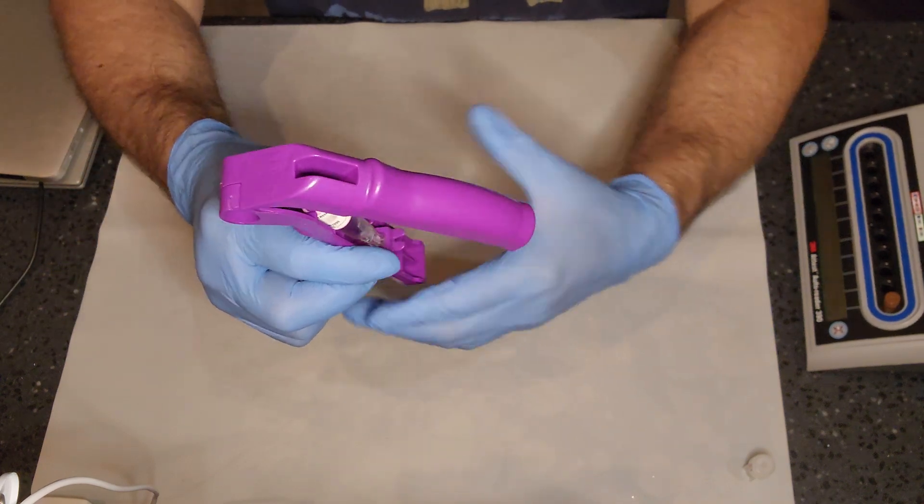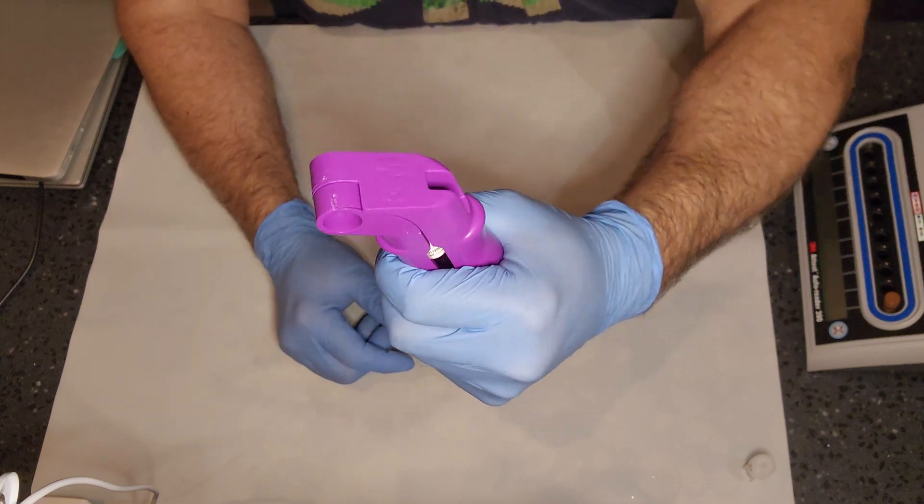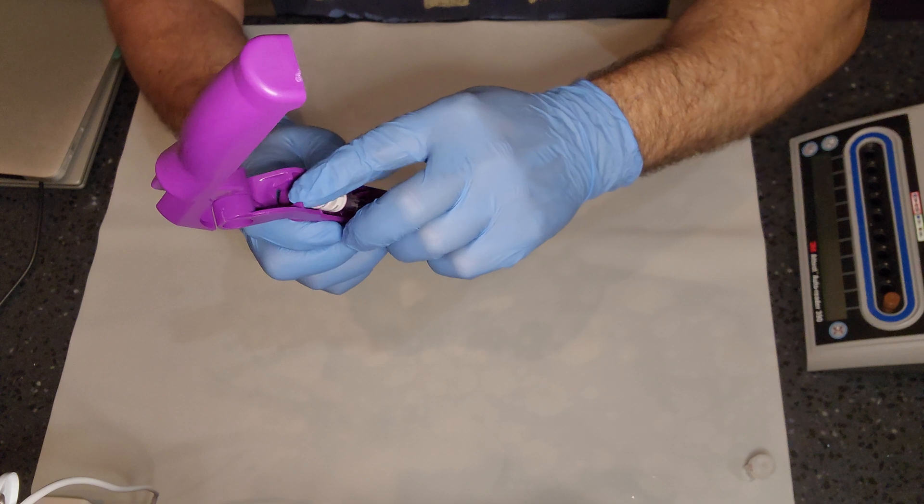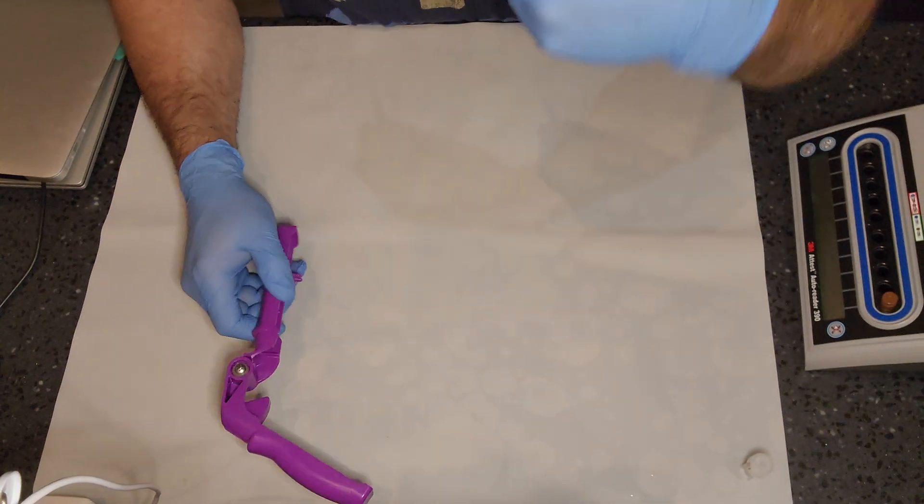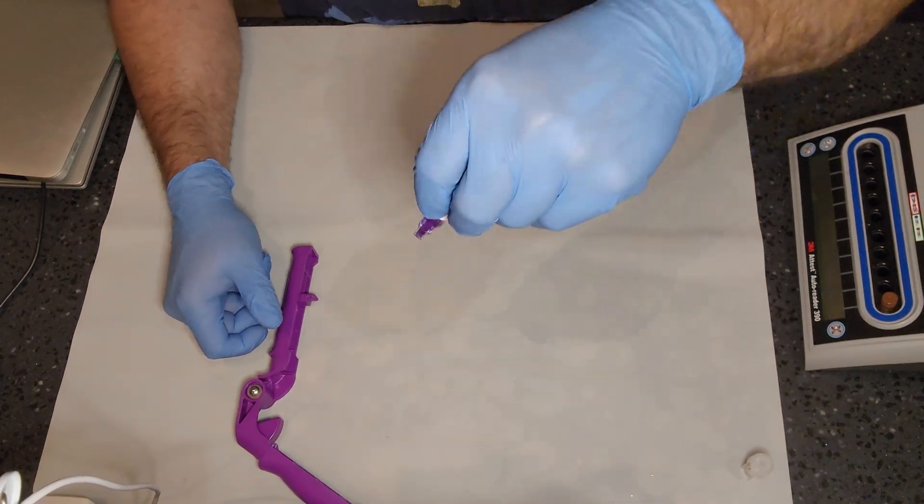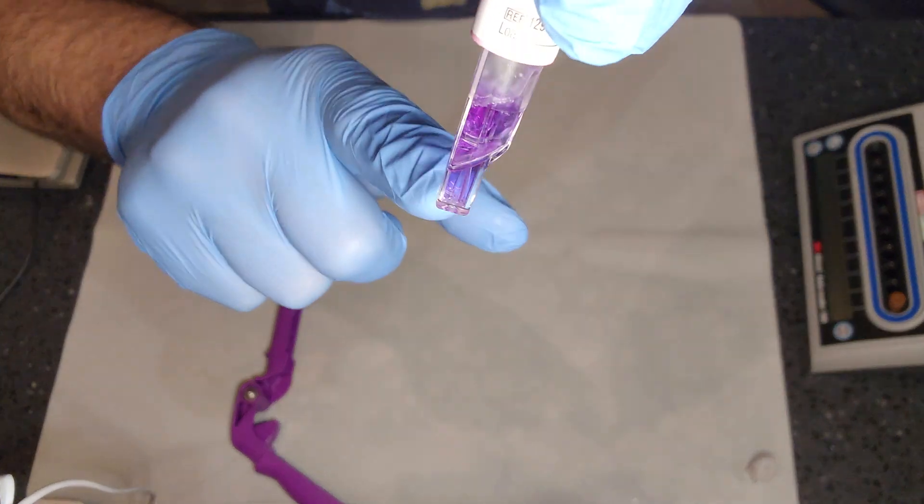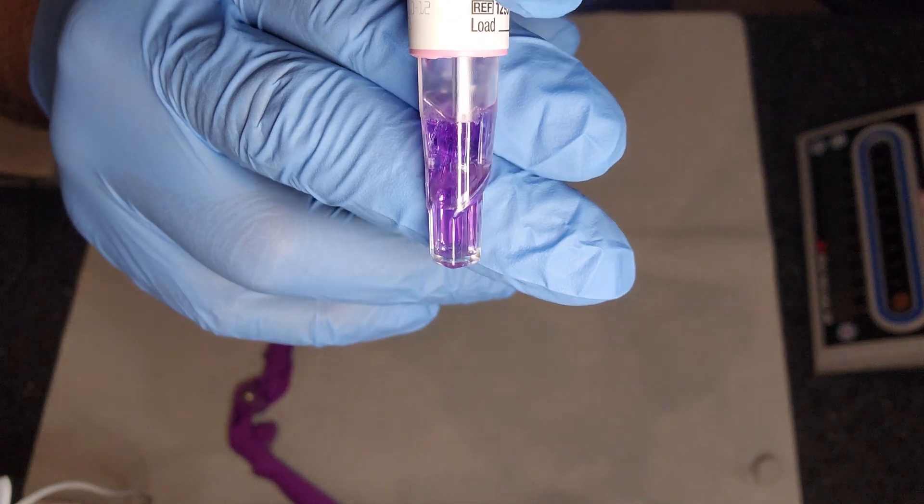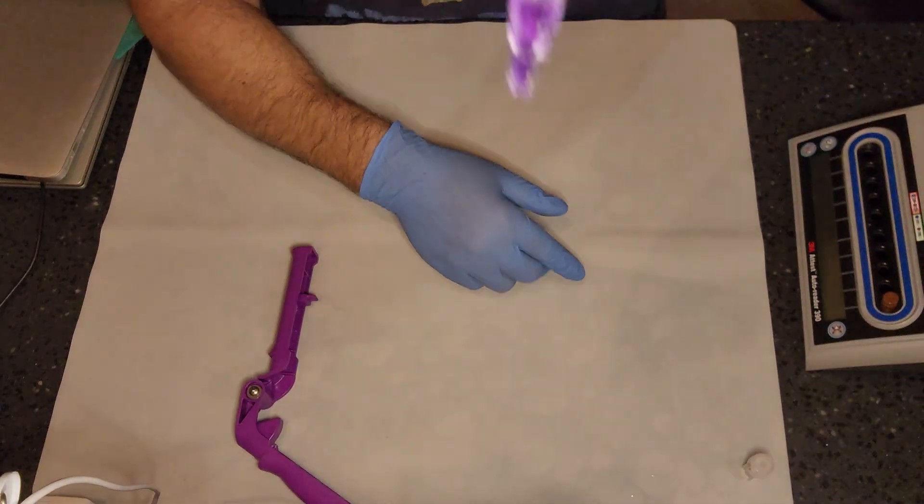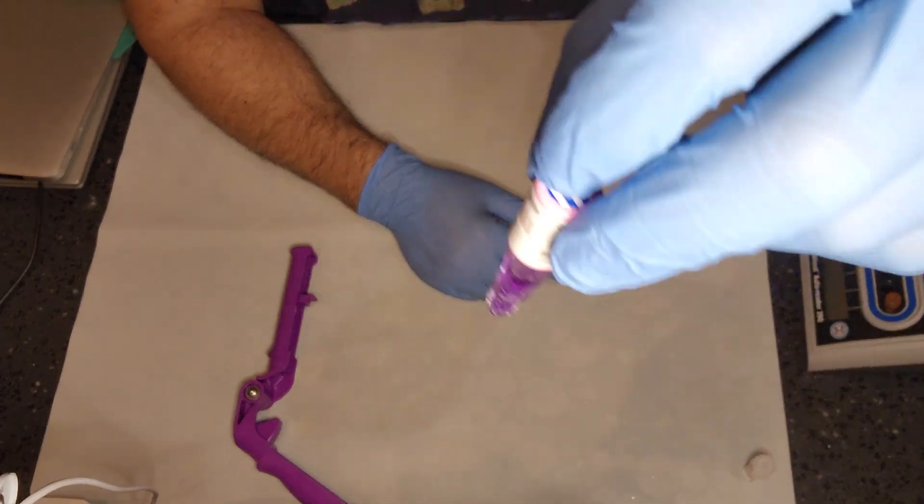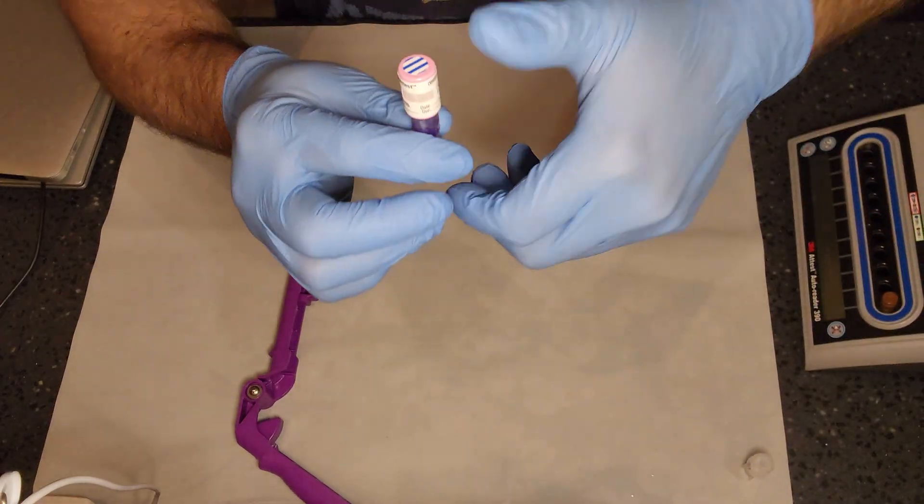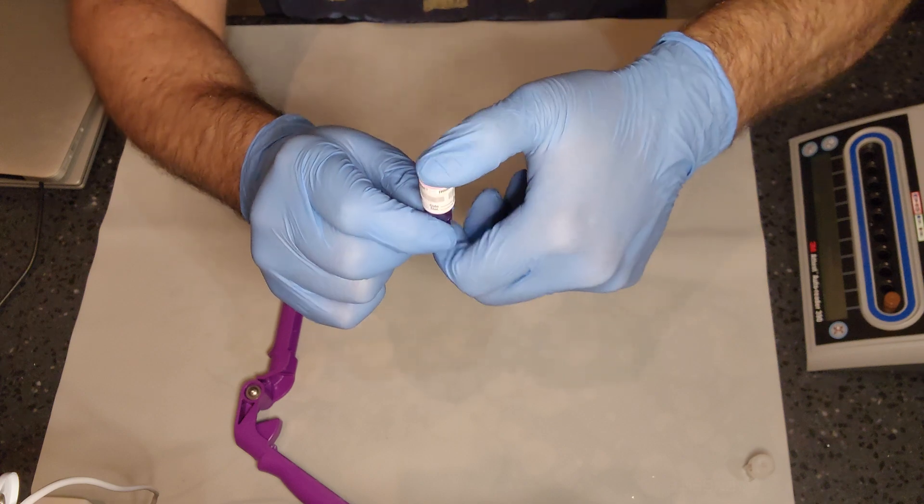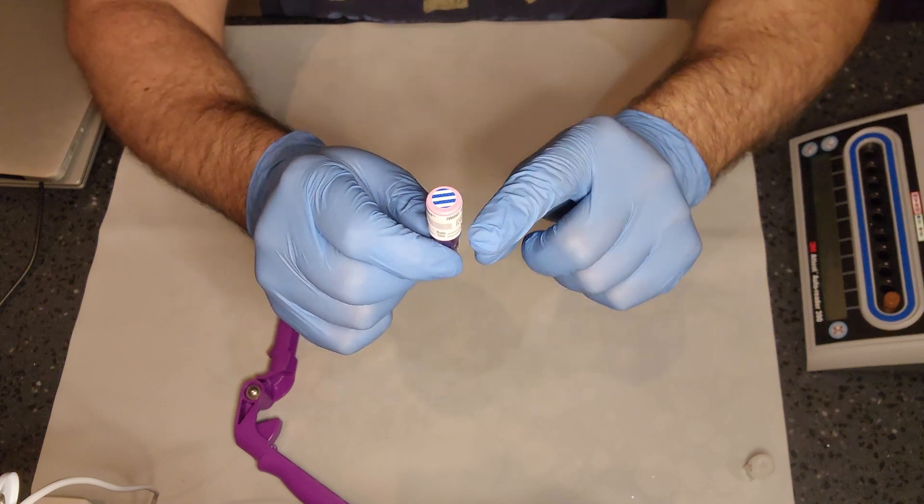Once you do that, lower down the handle and crush firmly. When you do that, you open it back up. And again, it's important that you flick down the growth medium so that in that little square base, you see no bubbles and no gaps. That is extremely important to reduce the risk of getting a false positive or negative. Again, when you place this into the incubator, it is a good idea to push down to make sure that the top is seated completely.